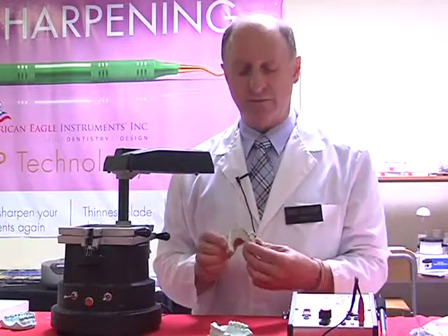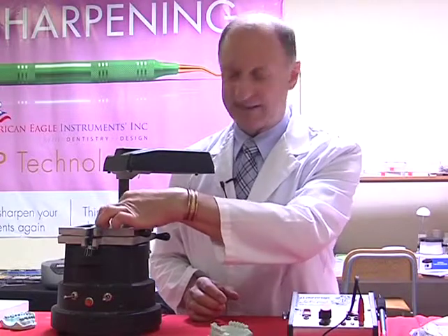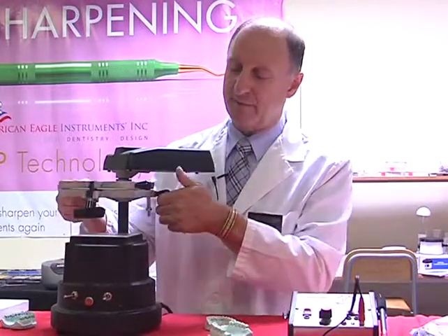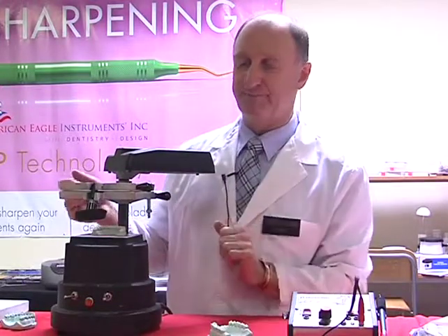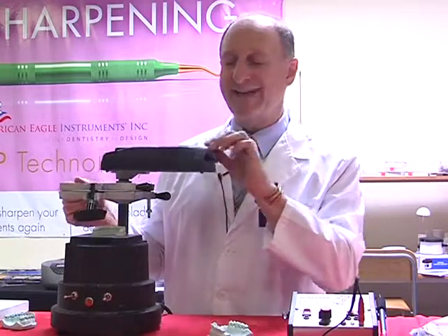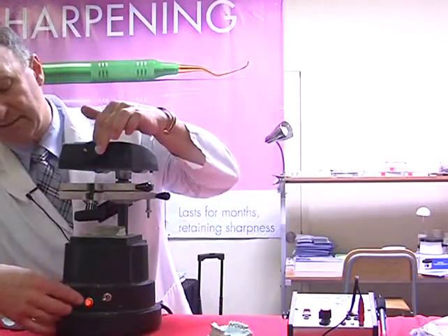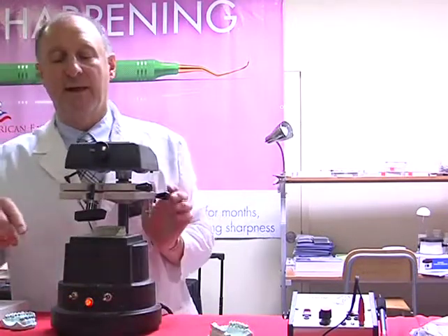I'm now ready to vacuum form, so what I'm going to do is place my model centrally onto the table, like so. Let's lift this up first, and then place this centrally onto the table. I then swing over my heater, making sure that I turn on my heater. The light comes on the system, telling me that it's heating.